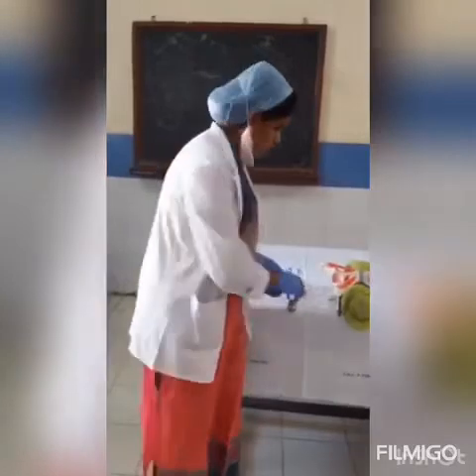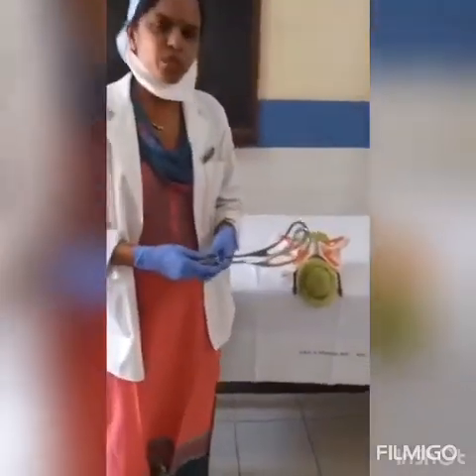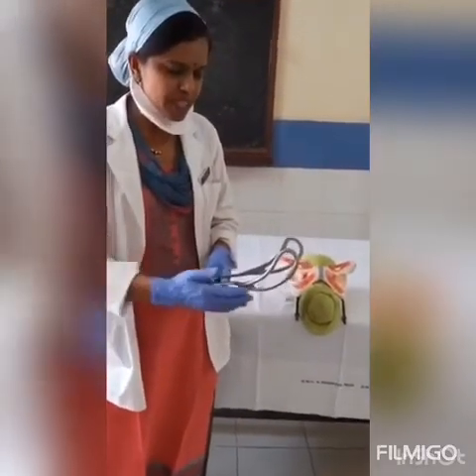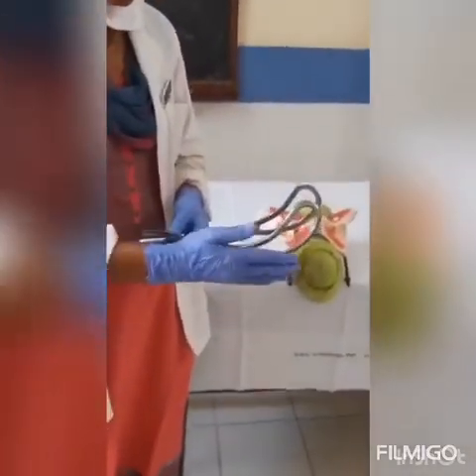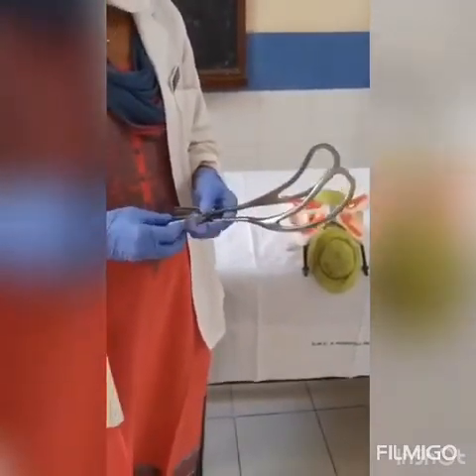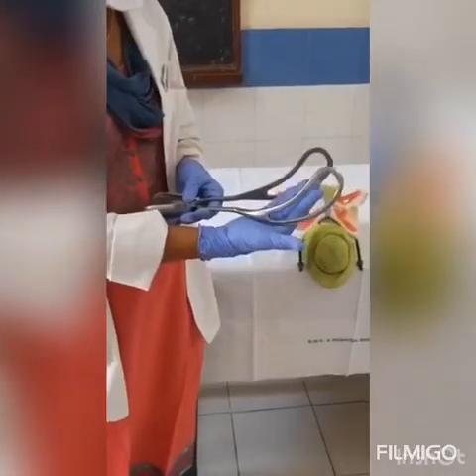Now I will be telling you about the parts of the forceps. These are the common type forceps routinely used — outlet forceps. These outlet forceps consist of four parts: blades, the shanks, the lock, and the handle. The fetal head fits snugly into the blades.